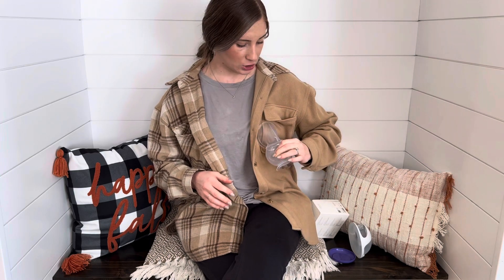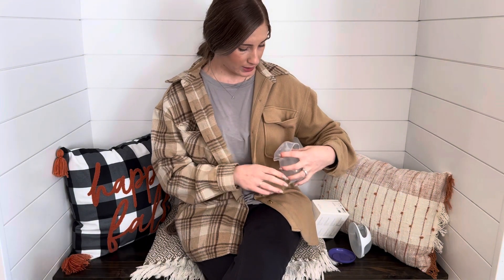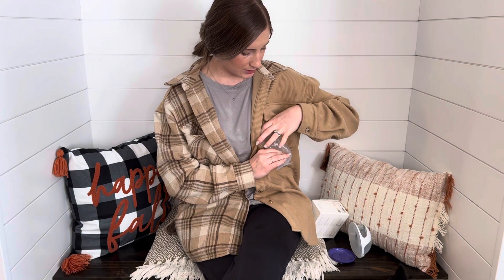I would suction it, feed my baby, and then switch to the other breast and do the same thing. I learned that if you put it on and suction just like that, you're not going to get as much milk out as if you flip the flange over, put your nipple inside the middle of it, squeeze it, and release — that's supposed to pull out more milk and capture more of your breast. I had no idea and was trying to do a ton of research to figure that out.